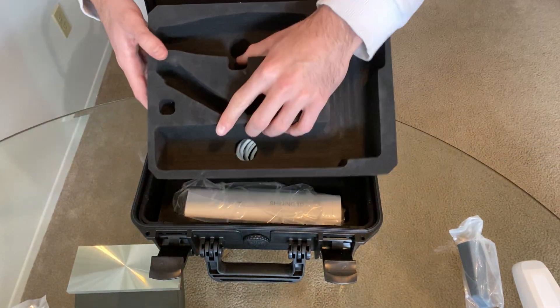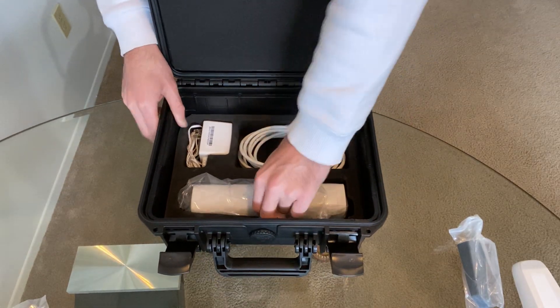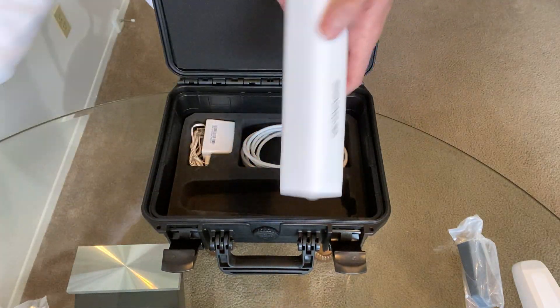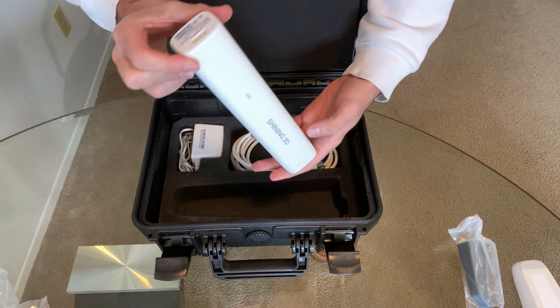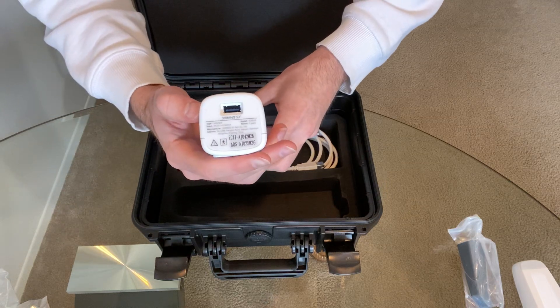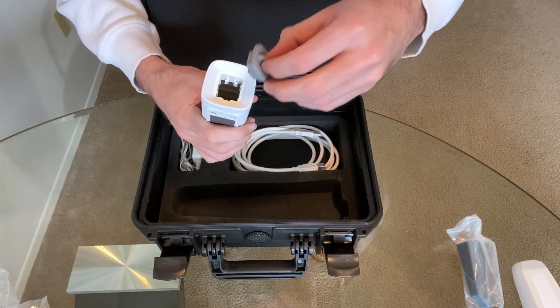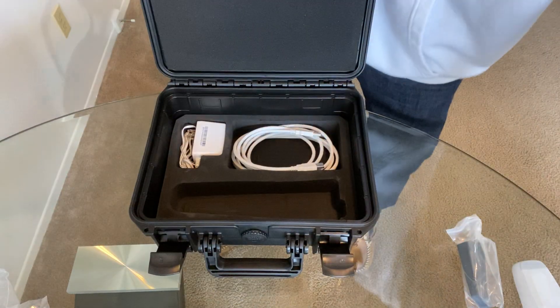There's a second layer underneath, and when you pull off the top layer, right here is the calibration tips. This you'll plug into a power source — your electric outlet — and it's a basic USB 3.0 connection. Then right here, if you take off the lid, you'll connect your camera on there and calibrate. We'll make another how-to video on that later. So that's your calibration tool.